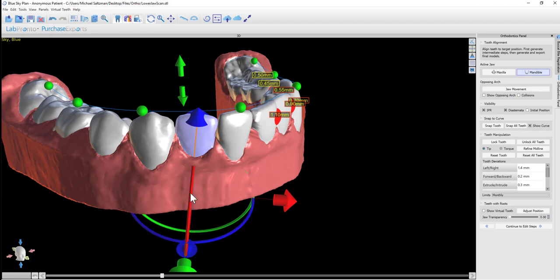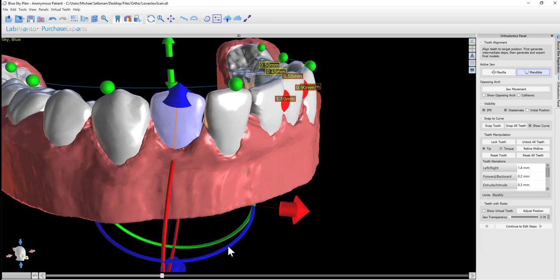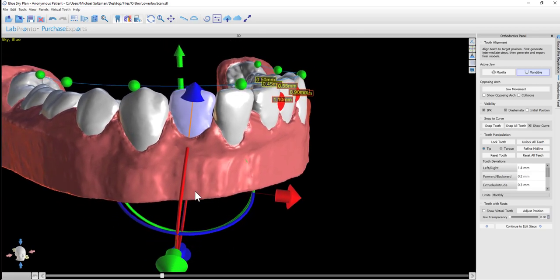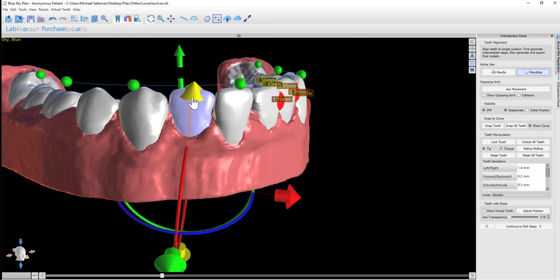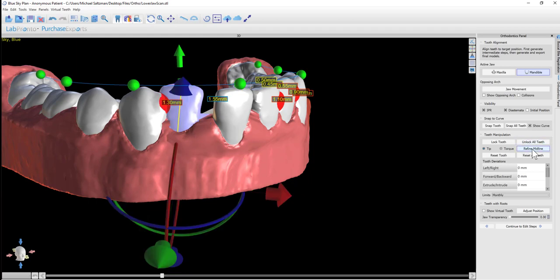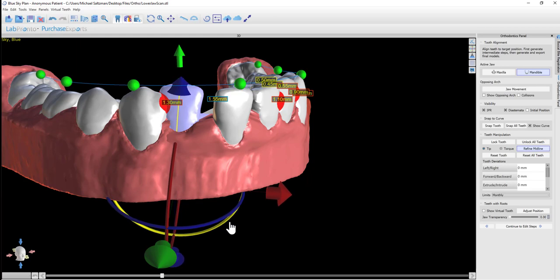The vertical axis of the widget should be going through the midline of the tooth to allow proper control and placement. If for whatever reason it's not going through the middle of the tooth, we have the button here to refine midline. If you click on that, you're able to reposition the widget on the tooth. You can fine-tune the placement and then unclick refine midline.